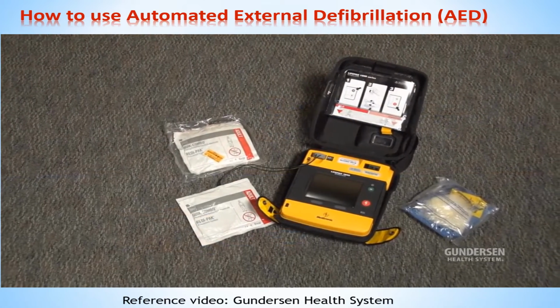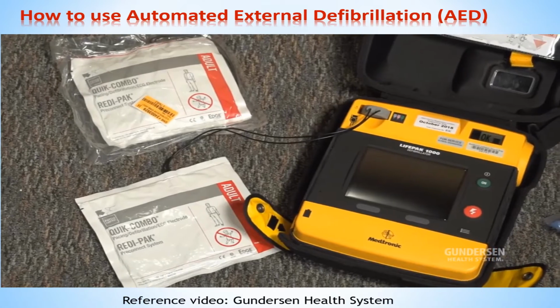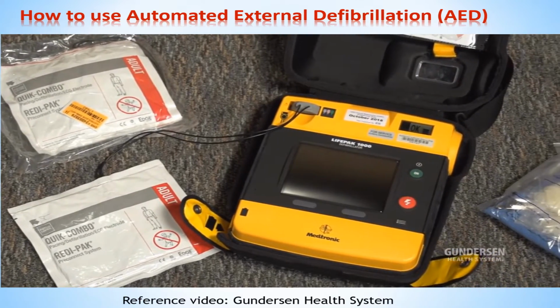We hope this video helps you feel more comfortable in the case that you have to use an AED. Your knowledge and quick action could save a life.